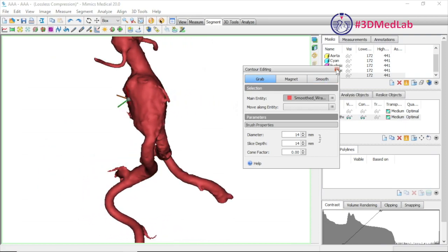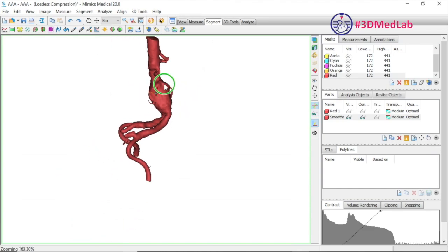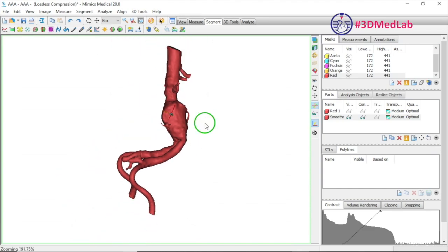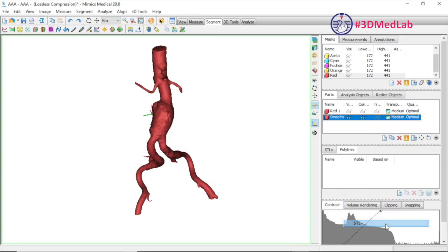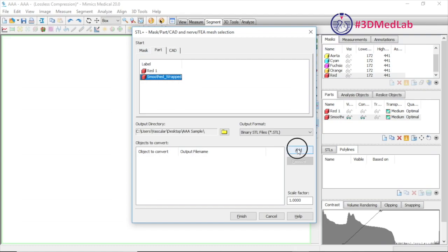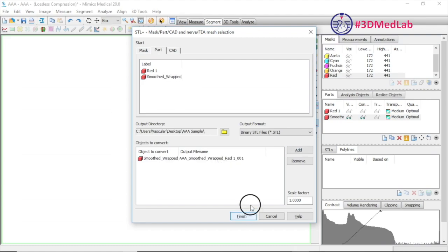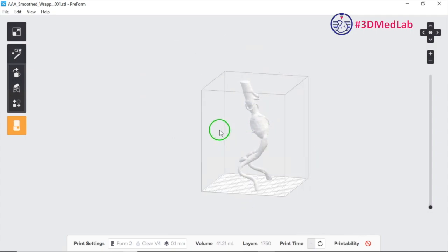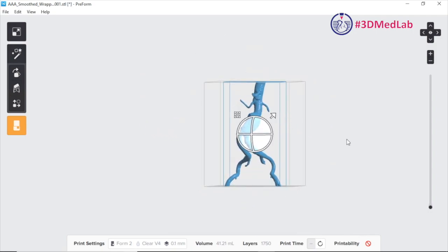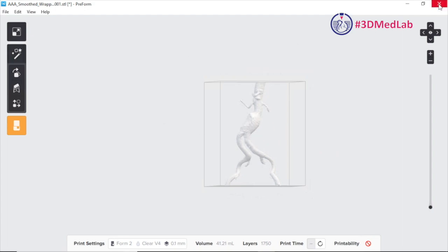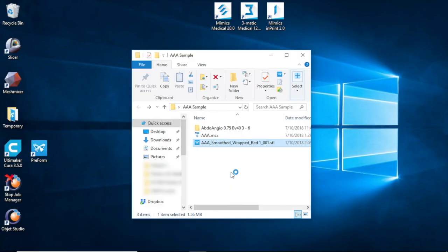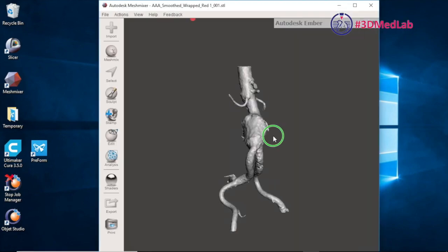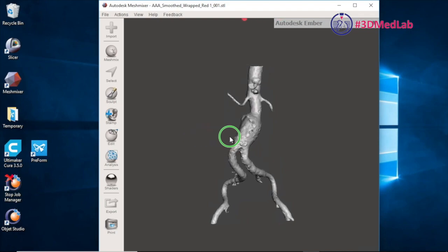Having done that, we're now ready to export our model to an STL file ready for printing. Right-click on the part and choose STL+, check where you want to save it and change the file name if needed. Click Finish and that will save your model — we can see it right here in our folder and open it up to confirm it's ready for printing. If you want to do any further editing you can open the model in MeshMixer or 3Matic and do whatever you like with it.